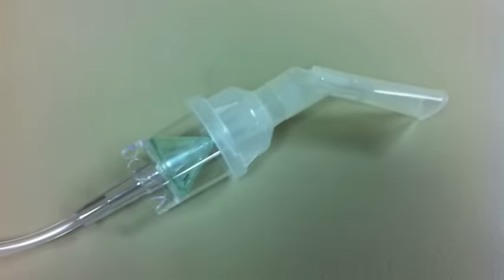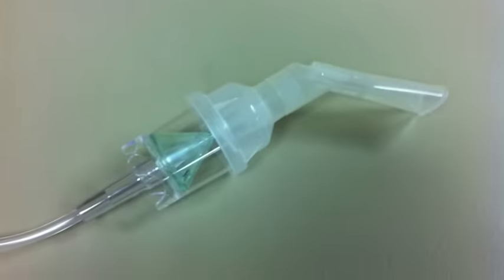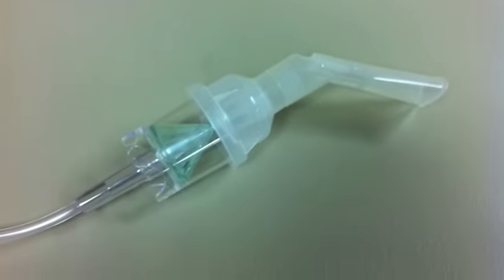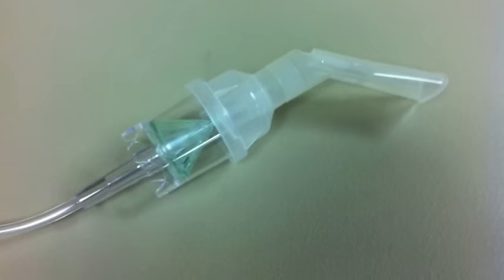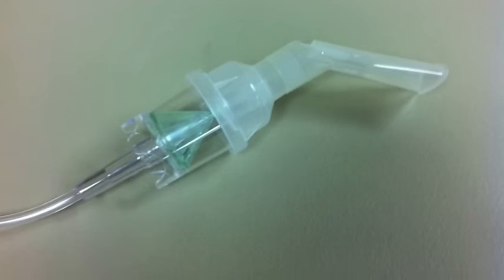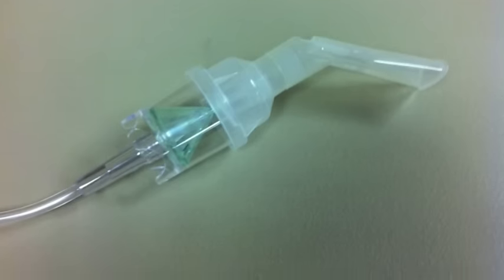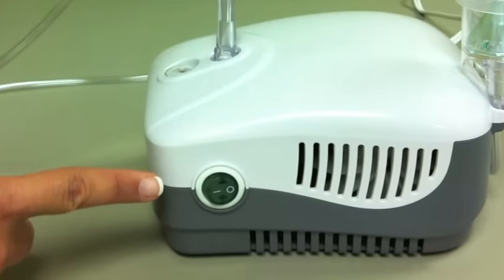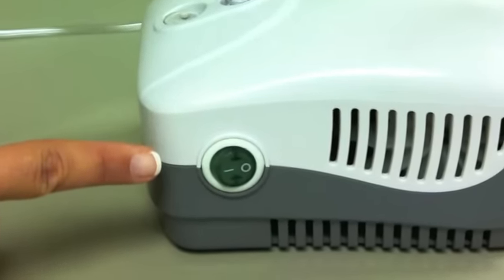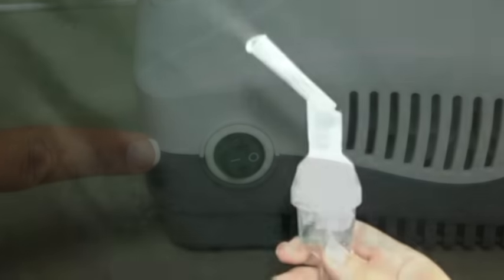Then connect either a mouthpiece or mask attachment to the medication cup. Do not lay the medication cup on its side, as this will cause the medication to spill. You are now ready to begin your treatment. Turn the power switch to the on position and the nebulizer will turn the medication into a mist.